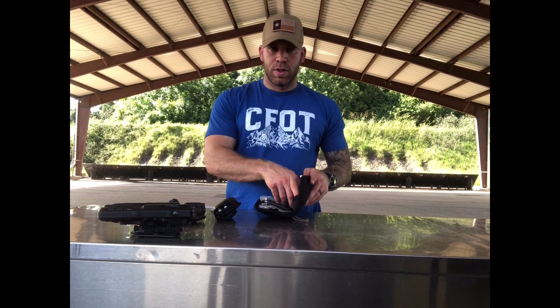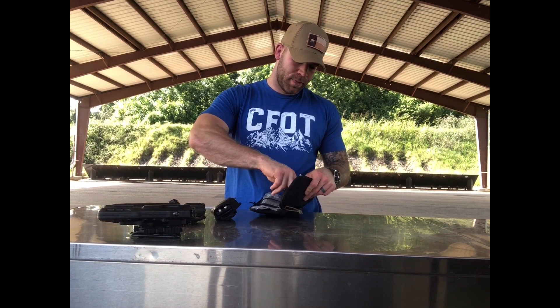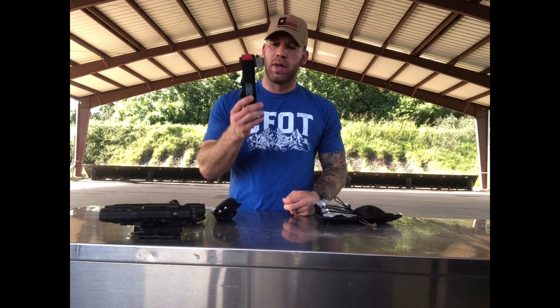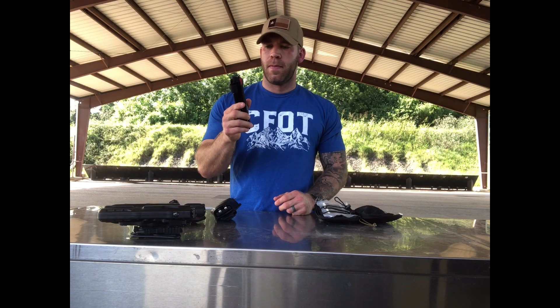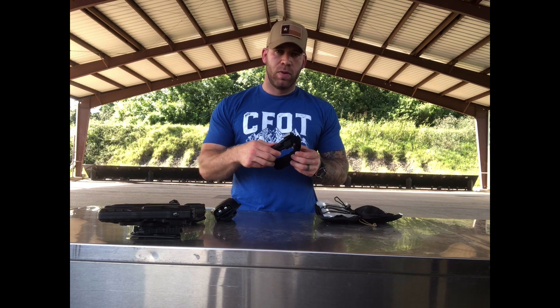The first thing you're going to get to is your tourniquet. This is a CAT tourniquet, one of the TCCC recommended tourniquets. It's definitely the primary adjunct for treating the leading causes of preventable deaths, which is bleeding out. For extremity wounds, applying a tourniquet is definitely your go-to, so that's going to be first coming out of the kit.